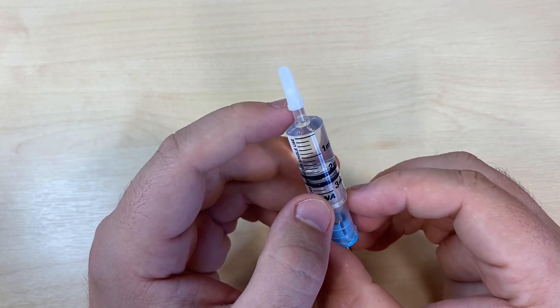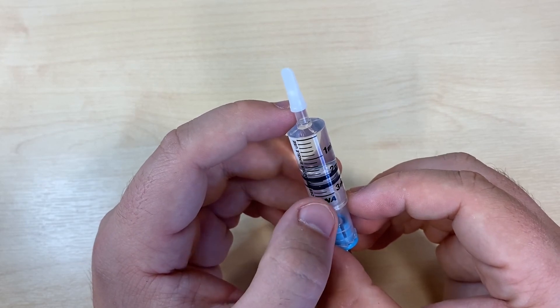The next stage involves your easy setter or your auto setter, depending on which Dana pump you're using.